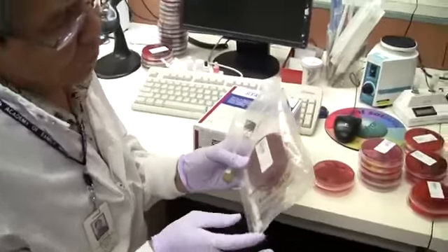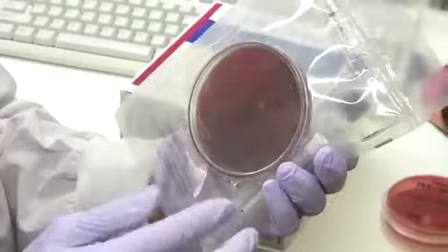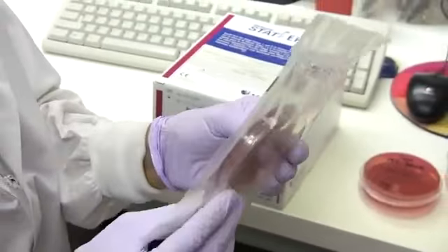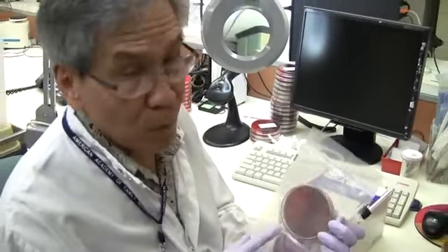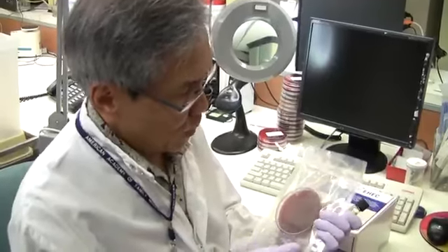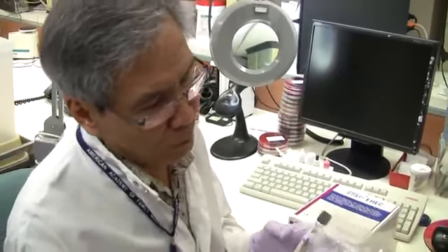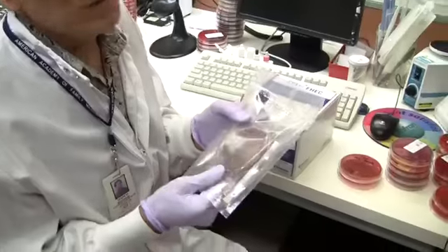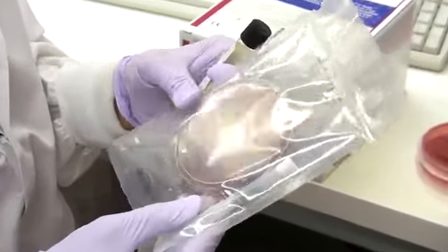O104:H4. So another part of the stool culture is this agar, which is called the Campylobacter agar. It's pretty much like a blood agar, but it's not. This has a lot of nutrients that will support the growth of Campylobacter jejuni. And one thing different is that because it's microaerophilic, we put it in a bag, that's what you can see, and incubate it at 42 because that is the maximum temperature in which you can isolate this organism better.